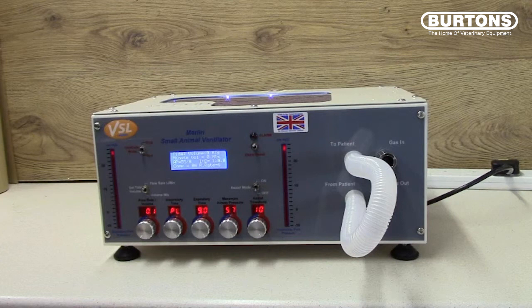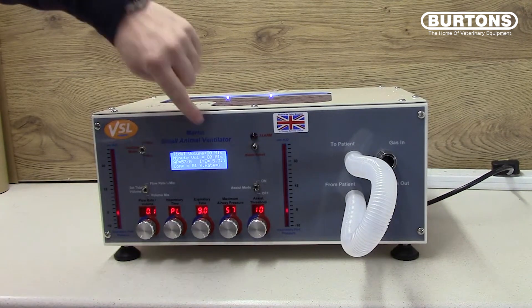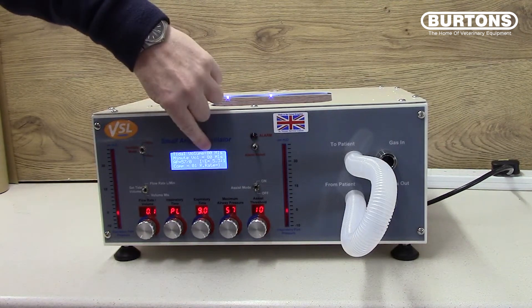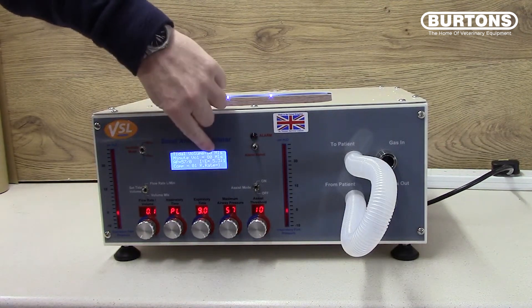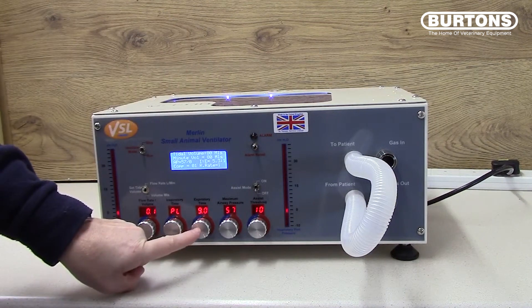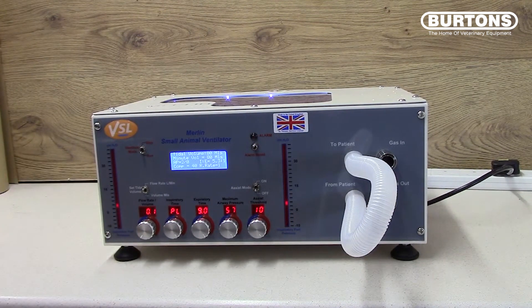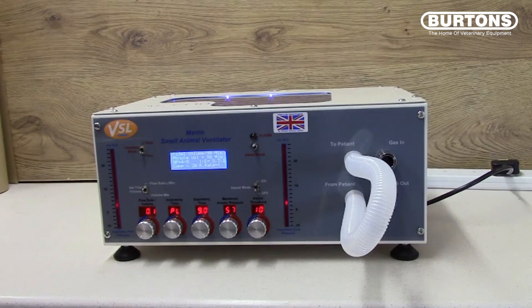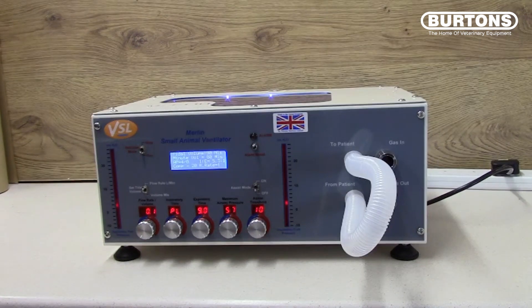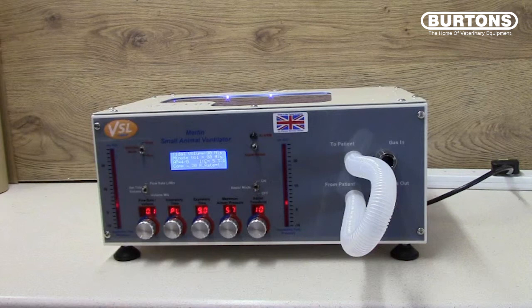Keep an eye on the LEDs at the top of the inspiratory and expiratory bar graph — watch how they drop when MERLIN reaches pressure. The tidal volume that has been displaced will be shown at the top of the screen. MERLIN will then wait 9 seconds as set by the expiratory time before the bar graph starts to rise in value again. Depending on the size of the tubing used for your link, expect a volume displaced of between 50 and 100 or 150 mils.